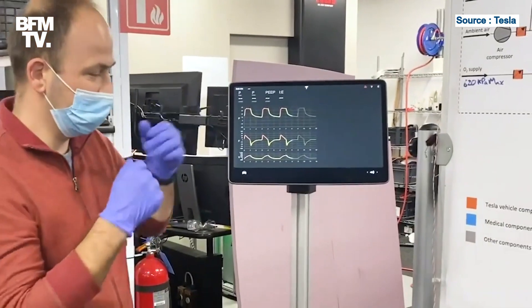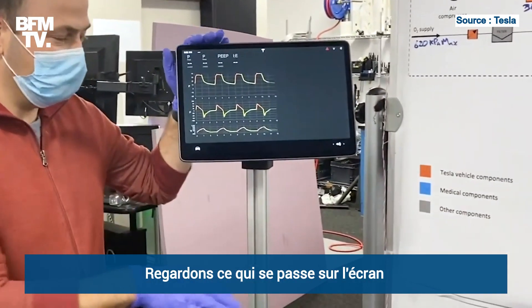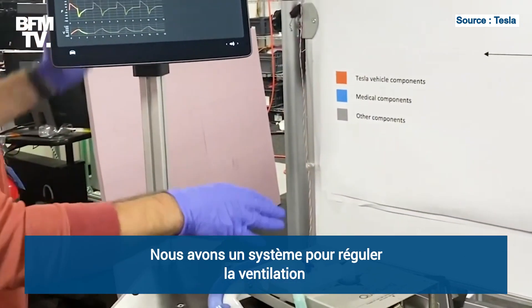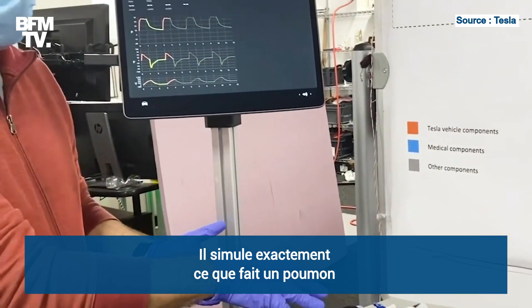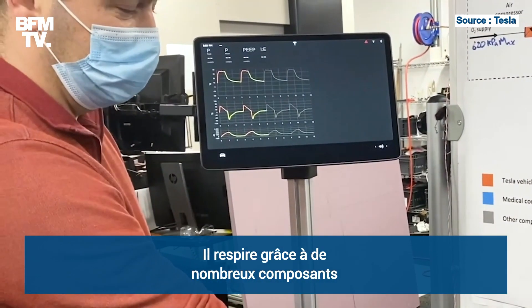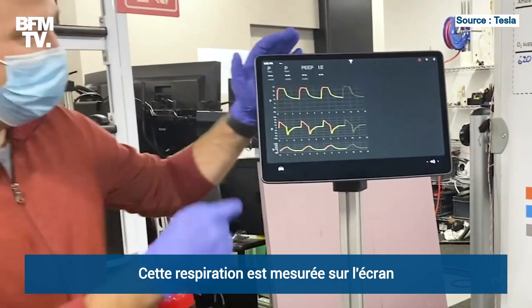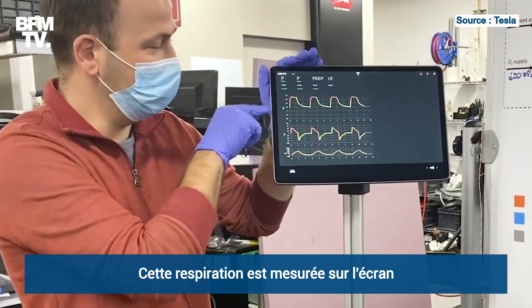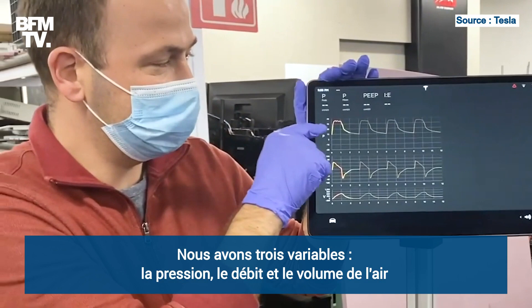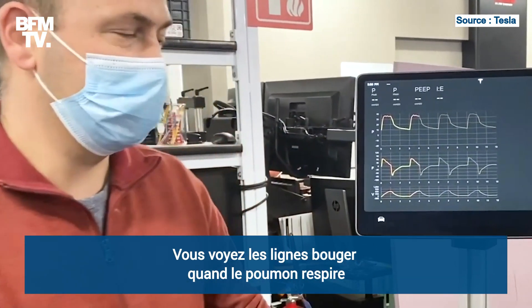Coming back up to the top, let's see what's happening on the UI. First of all, we've got a respiratory simulator right here. It's basically simulating what a lung does. It has various amounts of compliance and is breathing. That breath is actually being plotted out up here. We have three plots for pressure, flow, and volume, and you can see the line moving across as the lung is breathing.